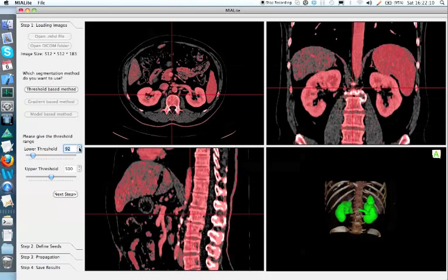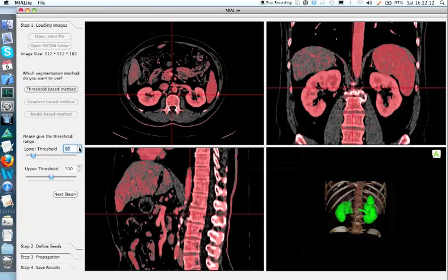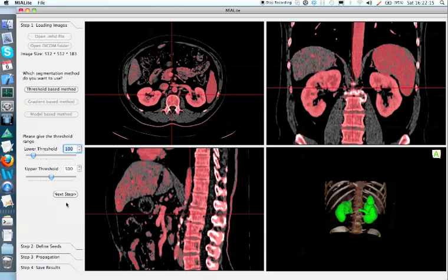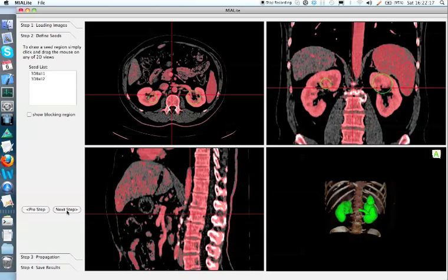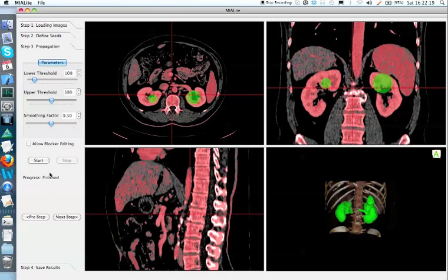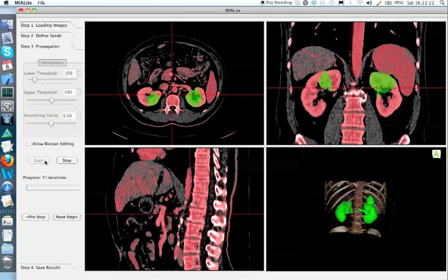First of all is to define the threshold region carefully. Like in this case, we increase the lower threshold a little bit, and this will help to keep the region stay inside the kidney.